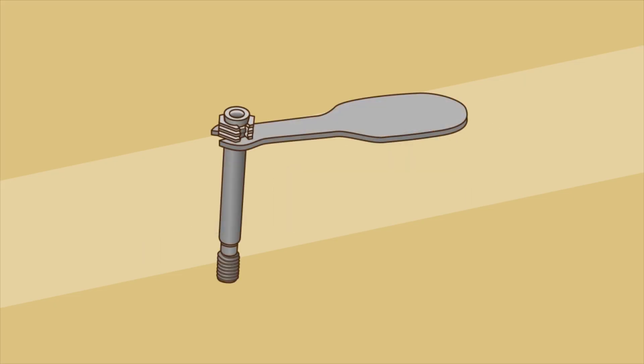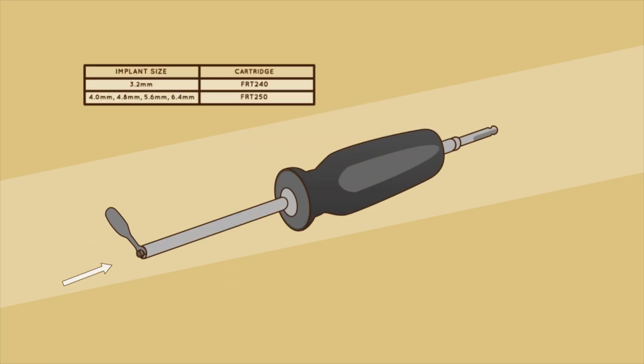Step 6. The cartridge is made of an expandable hex, a cone shaft, and a removable clip. Insert the cartridge and thread it in the female retriever. Remove the clip. Be careful to remove the clip in a linear motion to avoid pushing the hex onto the cone to avoid pre-expansion. Hand-tighten the cartridge to remove the gap. Do not over-tighten, as this poses a risk of pre-expanding the hex.